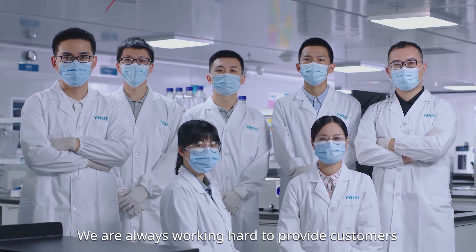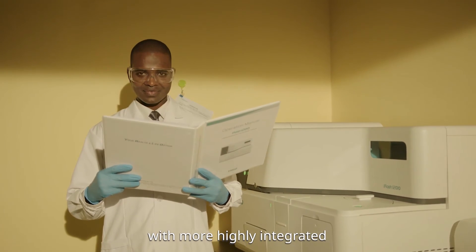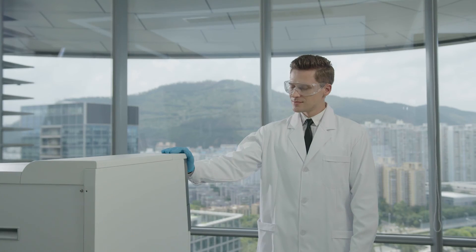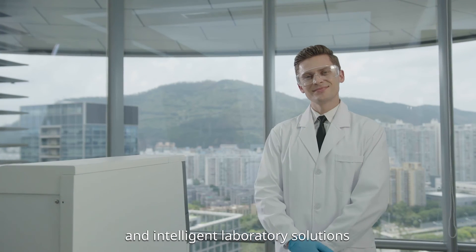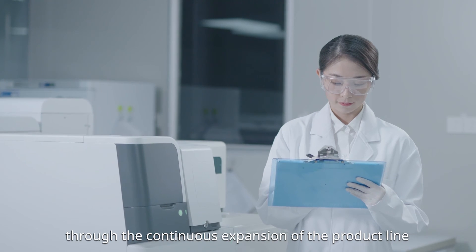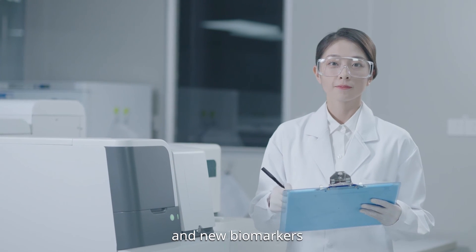We are always working hard to provide customers with more highly integrated, automated, and intelligent laboratory solutions through the continuous expansion of the product line and new biomarkers.